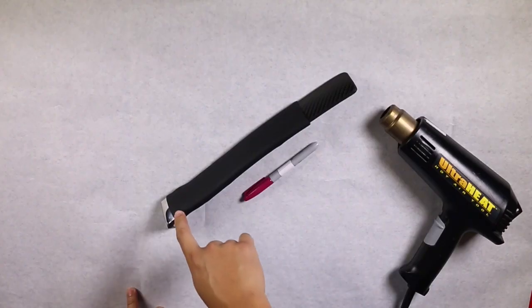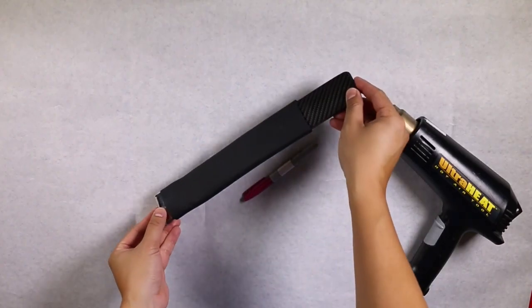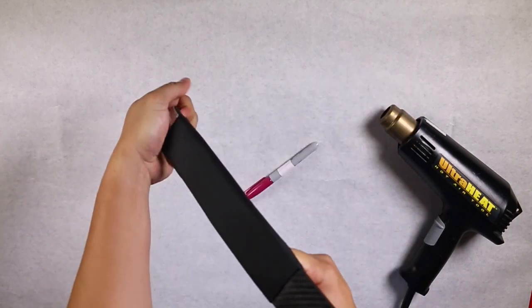To begin, remove the strut to be shaped from the infinite socket to work in isolation, then remove the strut cover.